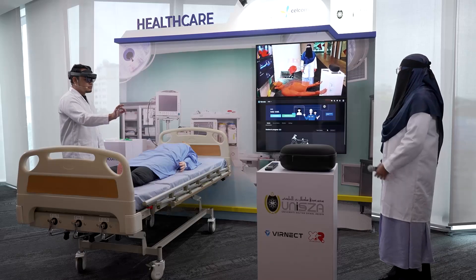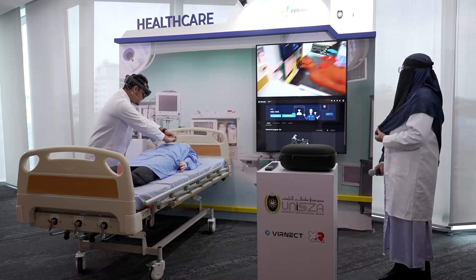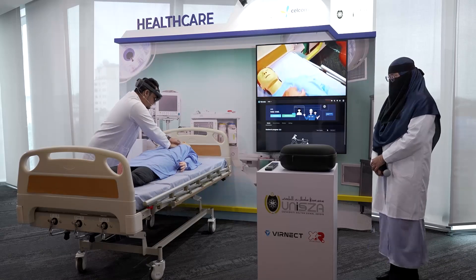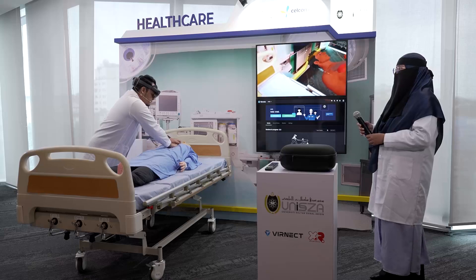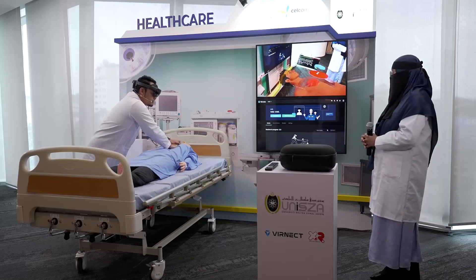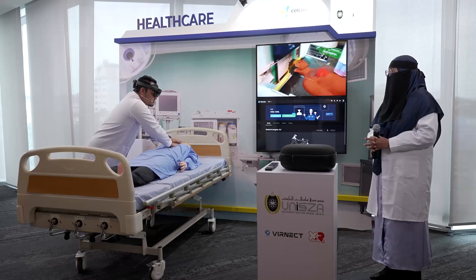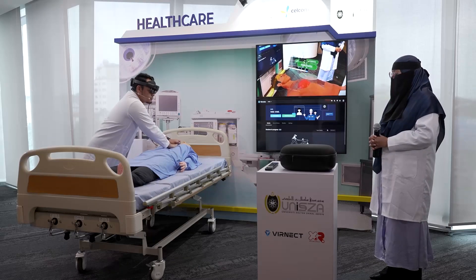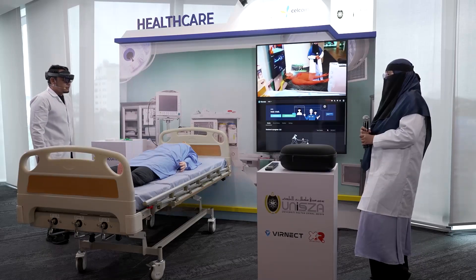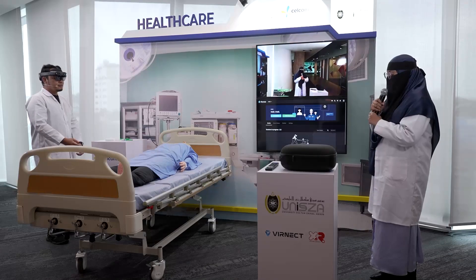The AI guides me to compress correctly. The heart rate is not normal yet, so I keep pushing and maintaining pressure. Now my patient is stable — thanks to the AI, the patient is okay. It's a success!